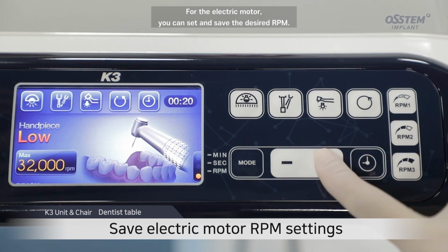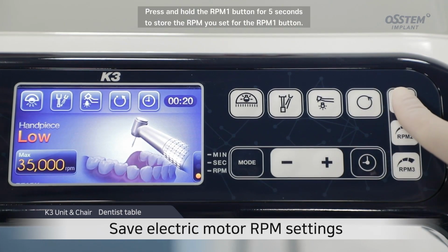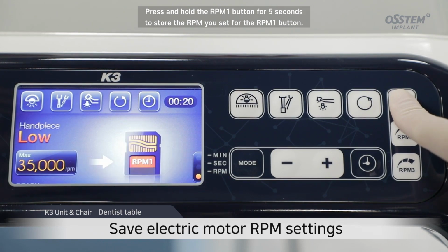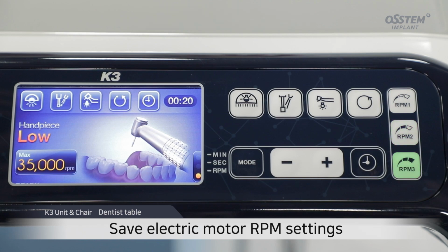For the electric motor, you can set and save the desired RPM. Press and hold the RPM 1 button for 5 seconds to store the RPM you set for the RPM 1 button. You can save for the RPM 2 and RPM 3 buttons in the same way.